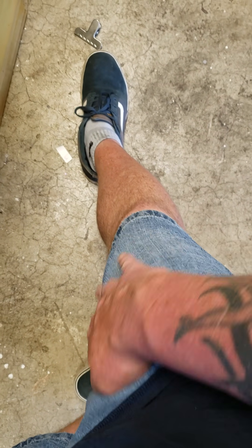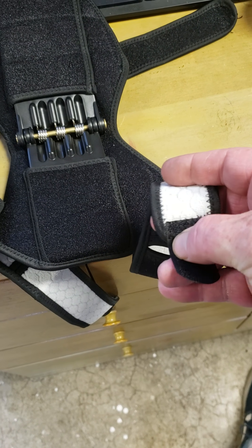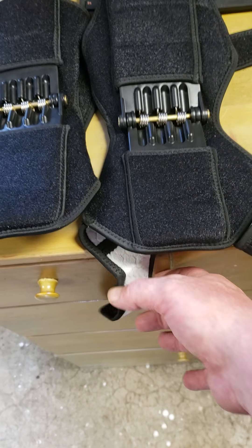— I'm not a fat dude, but pretty good sized up here. I put them around, and once I did bend down I can hear this thing coming off the Velcro, or off the other part over here.